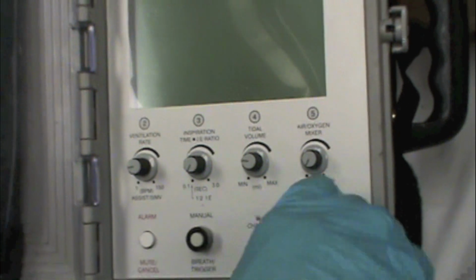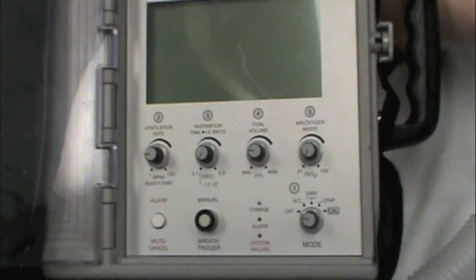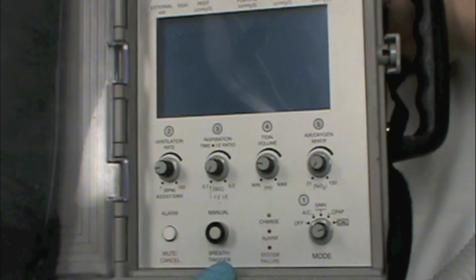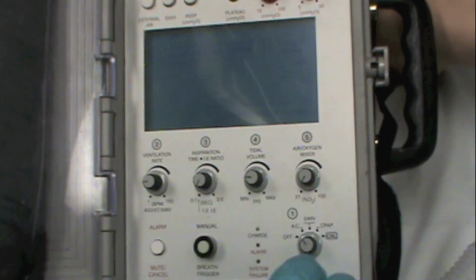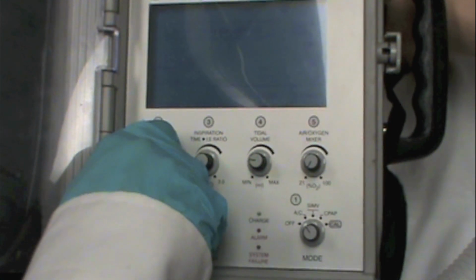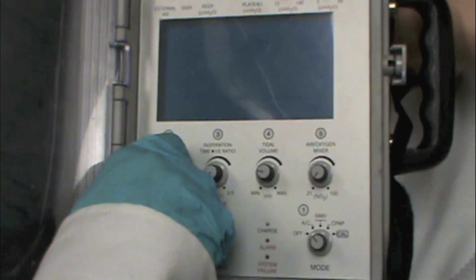So if we needed to quickly get the ventilator ready to set up on a patient, we'll show you how quick it'll go. So we start over with the calibration mode, put on calibrate. Calibrate's okay. We select our mode. We'll say this is a very well sedated patient. We're going to go to the AC mode. We're going to set a ventilation rate. I'll say the rate's going to be 16. So now we have a rate of 16.